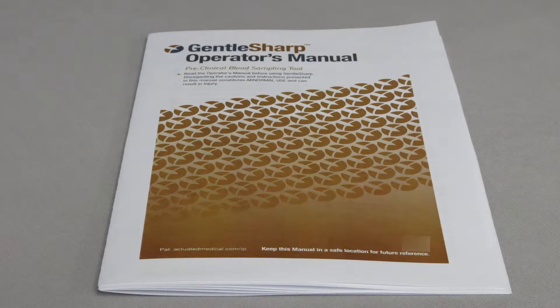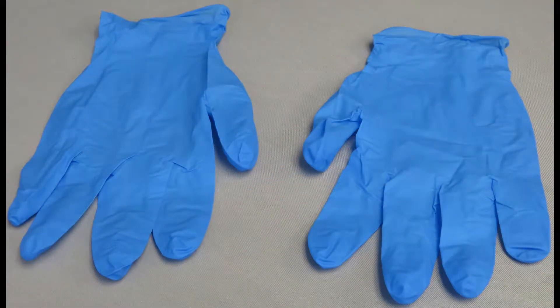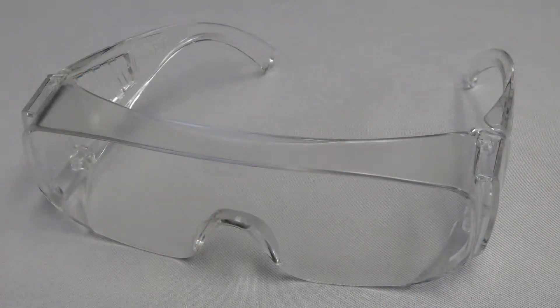Please read the entire operator's manual before using GentleSharp. Disregarding the cautions and instructions found in the manual constitutes abnormal use and can result in injury. When using the device, we recommend you wear a protective gown, gloves, eye protection, and any other personal protective equipment required by your facility's policies.